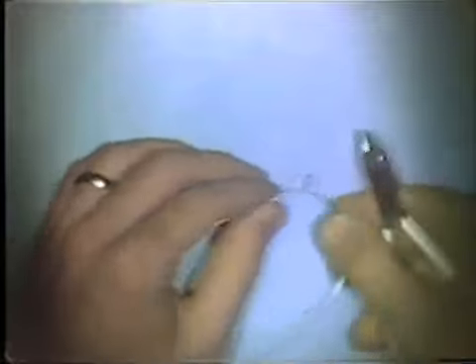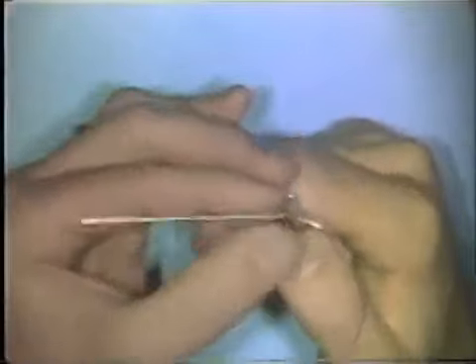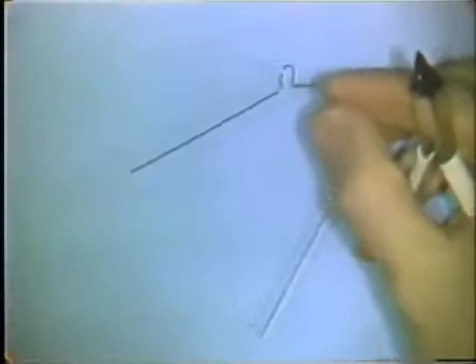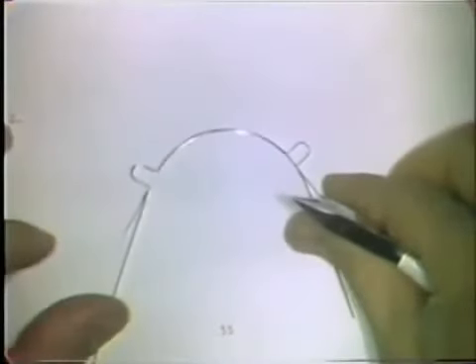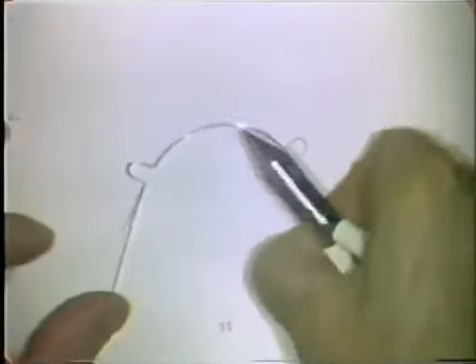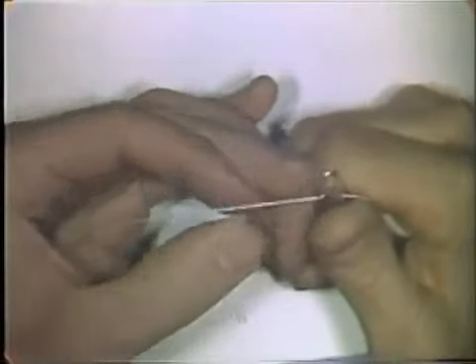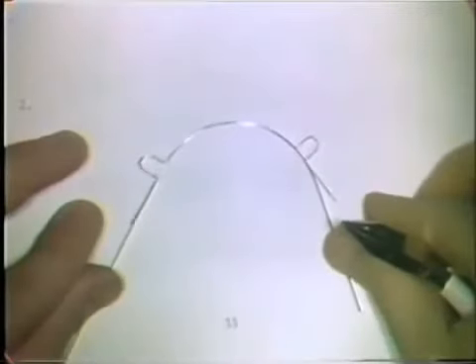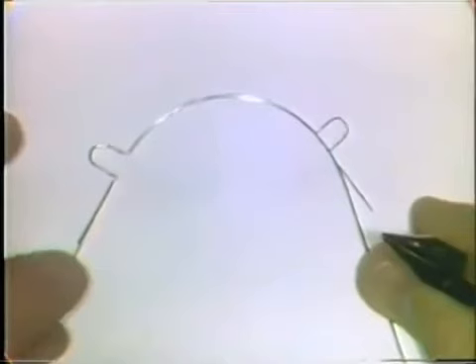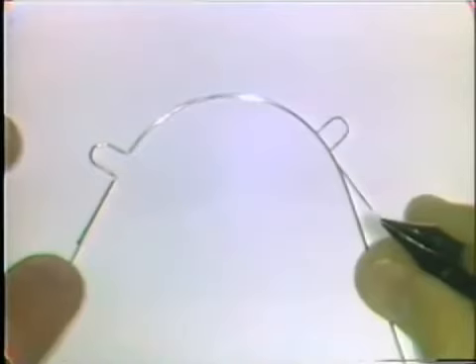You complete the formation of the 90-degree bend and try it back on the pattern. A little more bend is needed, and then the first half of this curvature exercise has been formed. The wire should lie directly over the lines on the pattern, should be flat on the table surface, and the wire should be free of nicks, scratches, and surface defects.